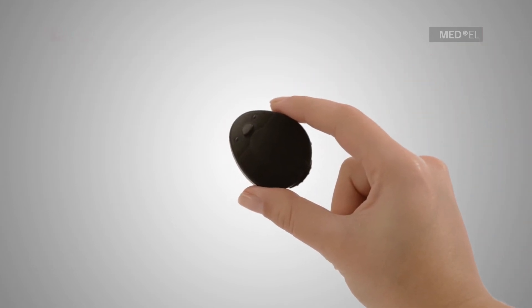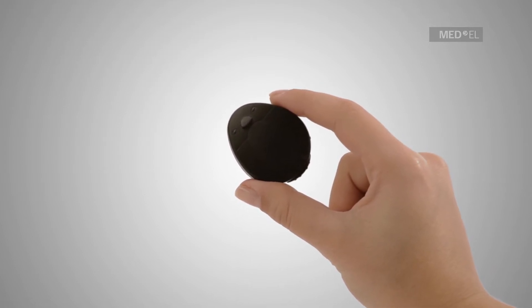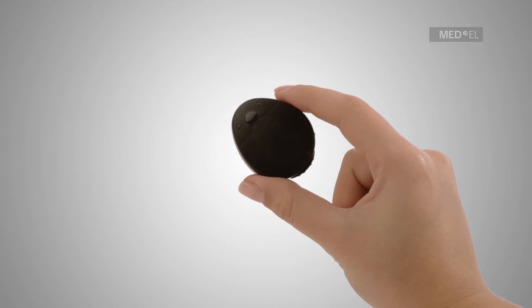Various magnet strengths are available for the rondo. To replace the magnet, remove the battery pack from the control unit by first unlocking the rondo.